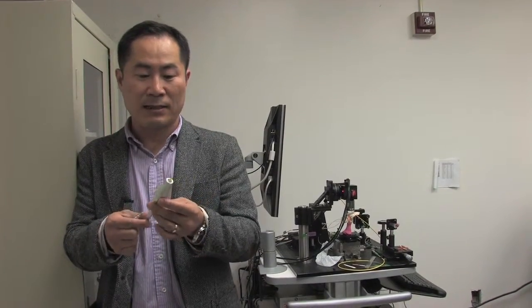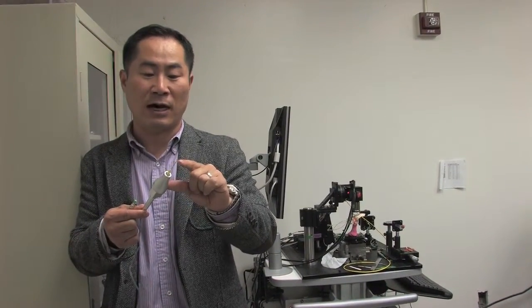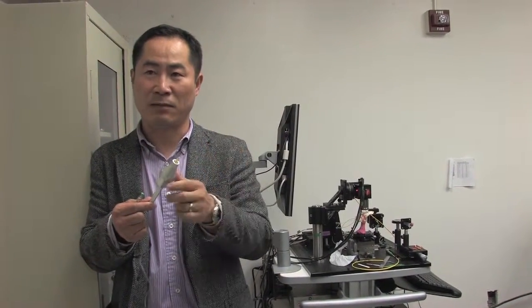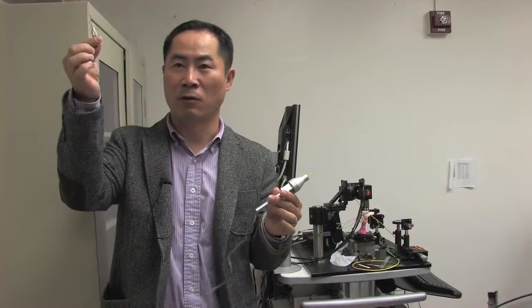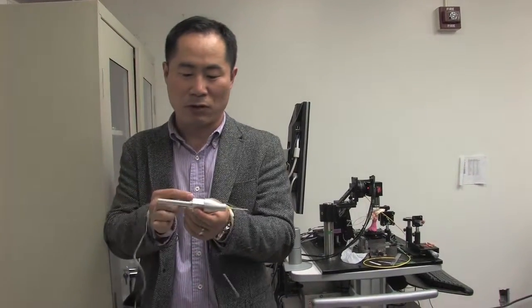This is an outer needle and it also has an inner needle which is sharp and has a little pick to it. Within the inner needle, there is a fiber optic OCT sensor probe attached to it. The inner needle, the back end of the inner needle, is attached to an actual motor here.